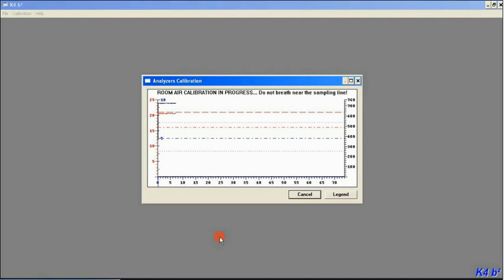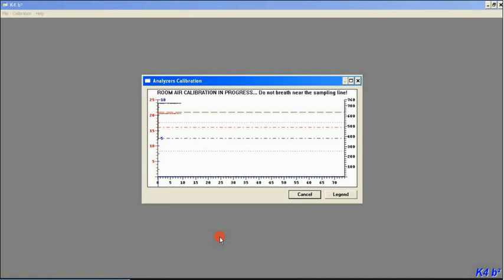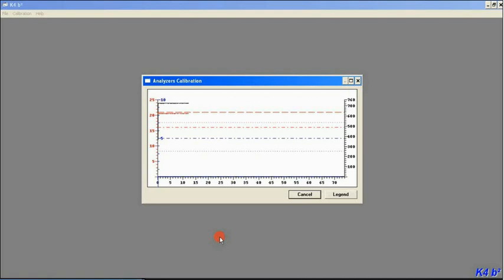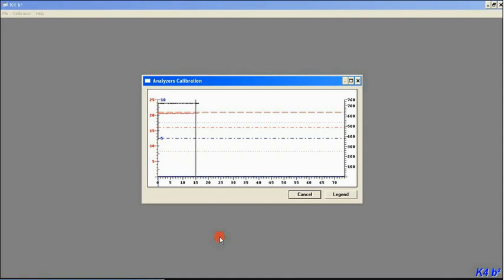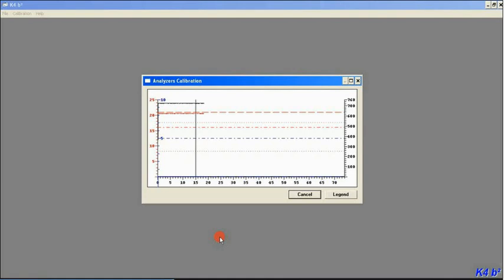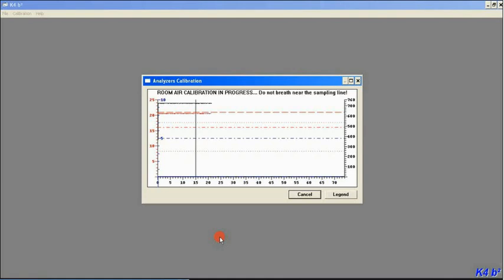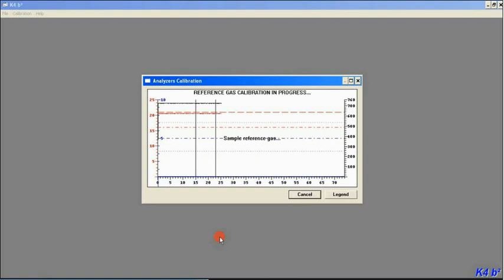The first vertical line is going to pop up here real soon, and then similarly the second one will pop up just as before. After the second one pops up, just like you saw in that last video, that's when that quick process happens where you need to quickly put the flow line into the calibration box and open up that cylinder.